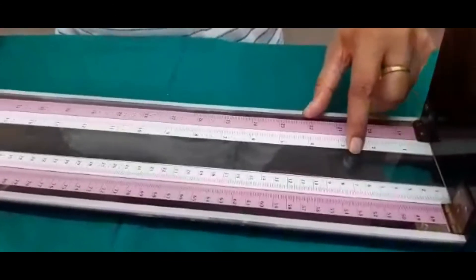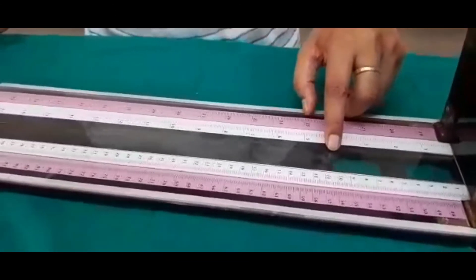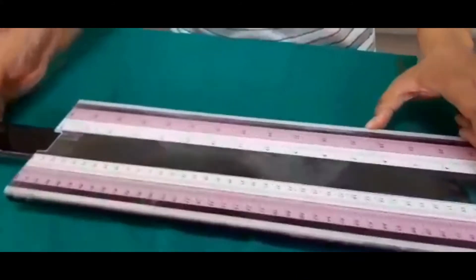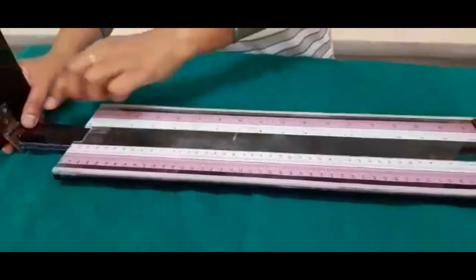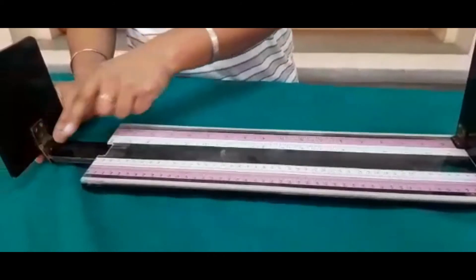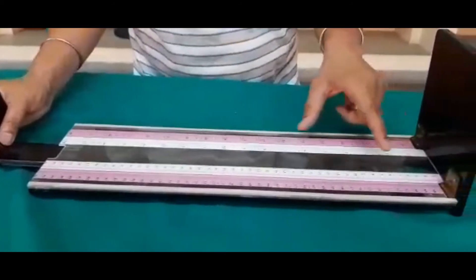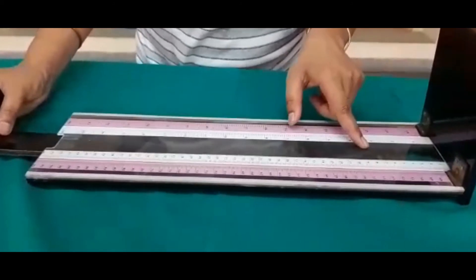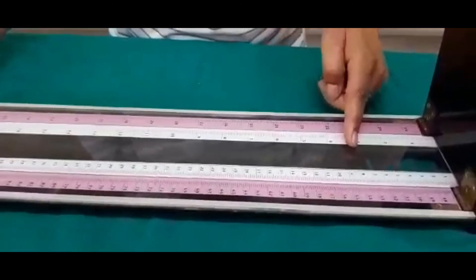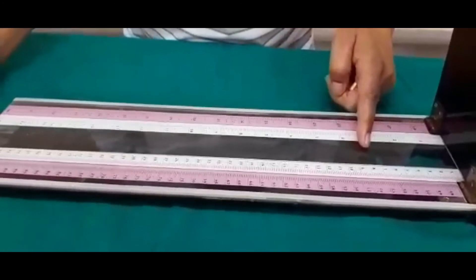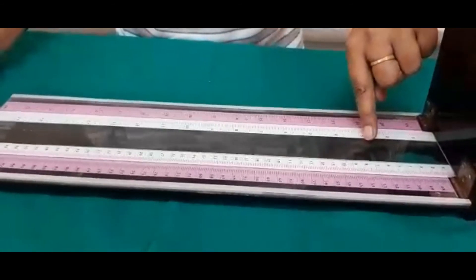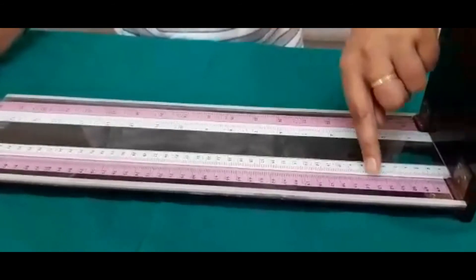I think it is visible to you. This point helps us to measure the length with the help of pink tape. Our baby length in today's scenario and in today's demonstration, the baby dummy length is till here. And we have to measure with the help of infantometer, with the help of this scale. And we can check the scale parallel to the pink line, and it is 53 from this point parallel to the pink line.